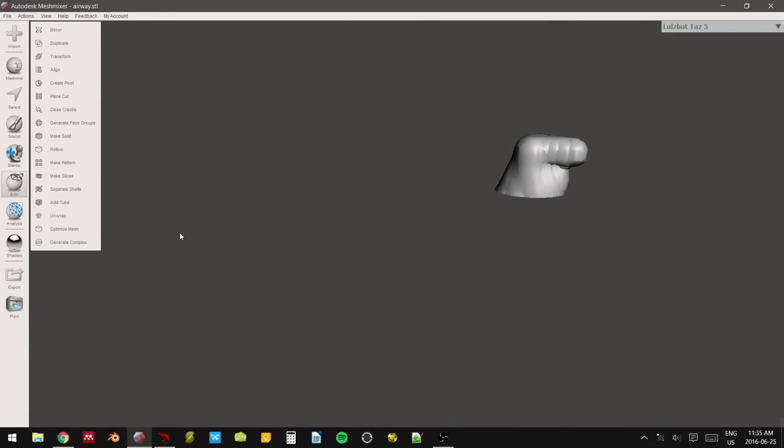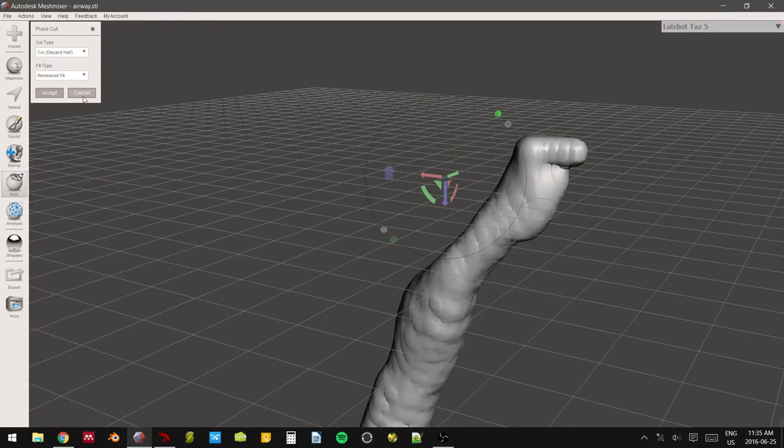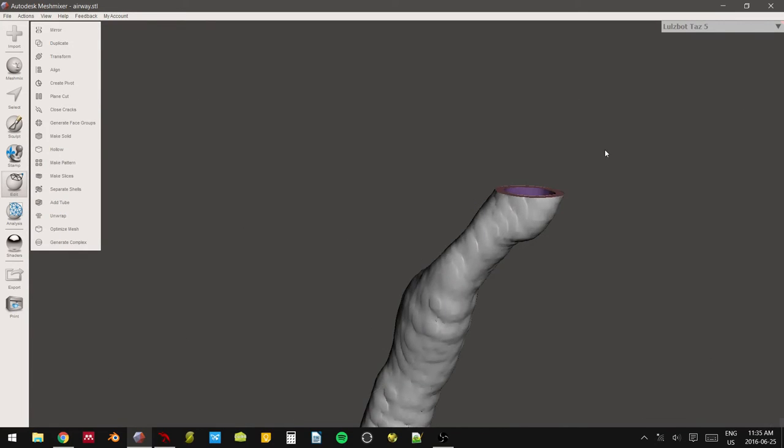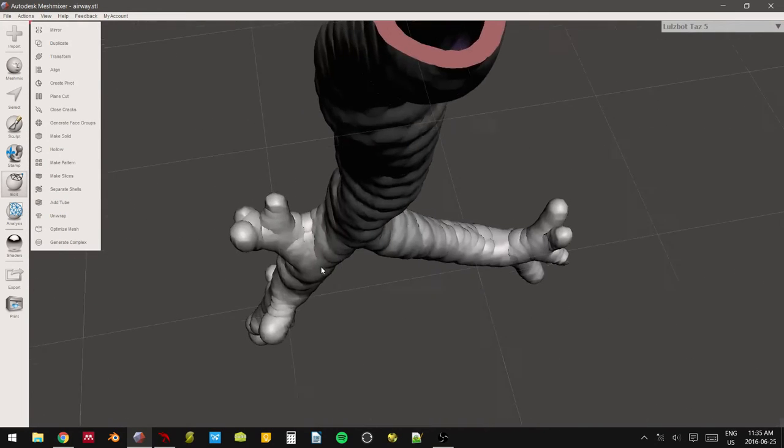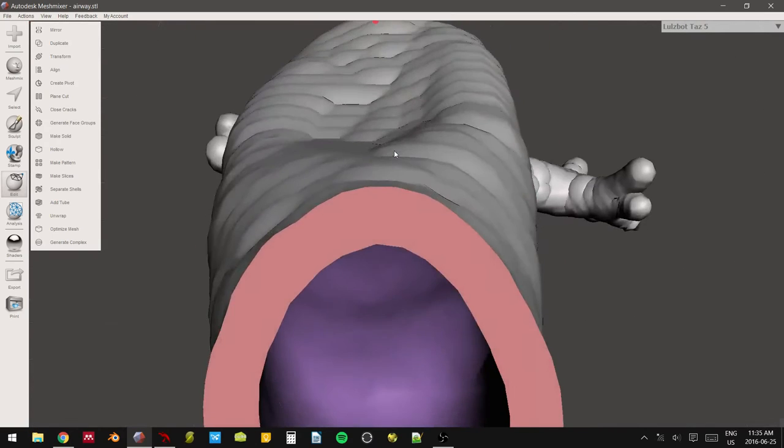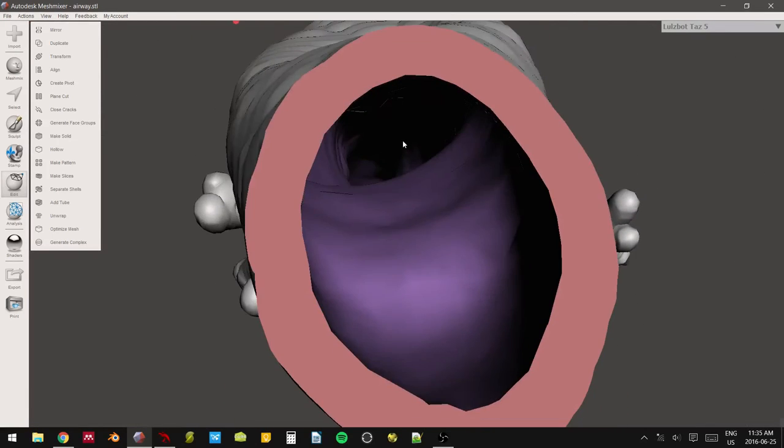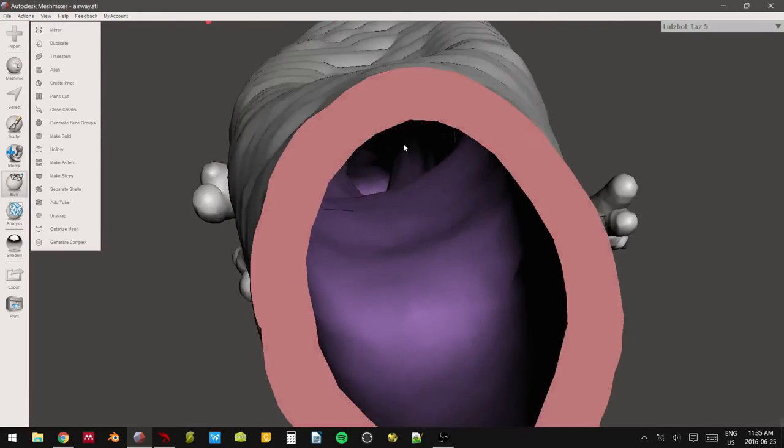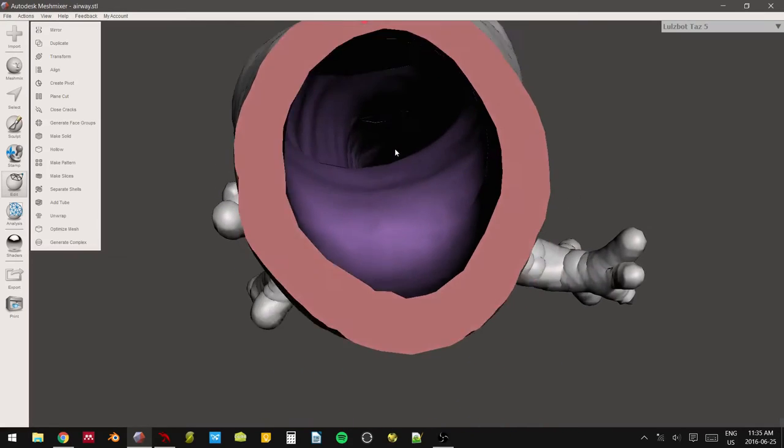This fat arrow is pointing downwards because this is actually going to tell us which parts to keep. Accept. Wow, I was totally wrong. You're going to want to go upwards and then hit accept. So aside from that little screw up, now you can see that your model is hollow. You have completely removed a one-to-one replica of what you pulled out from CT. And then from this, you can do your bronchoscopies.